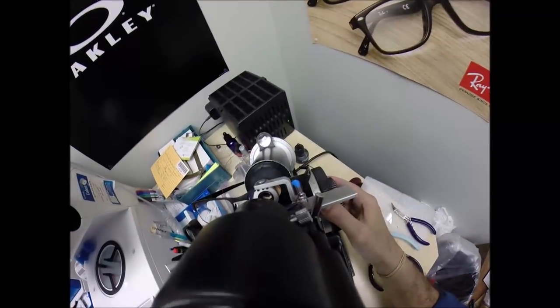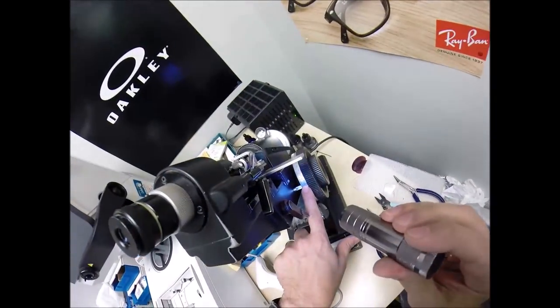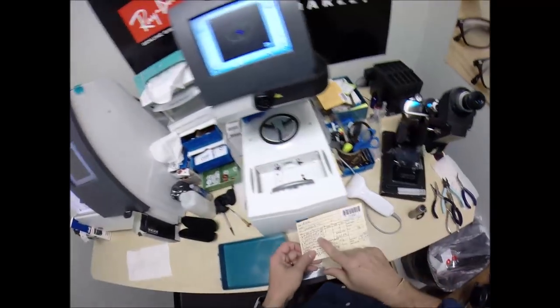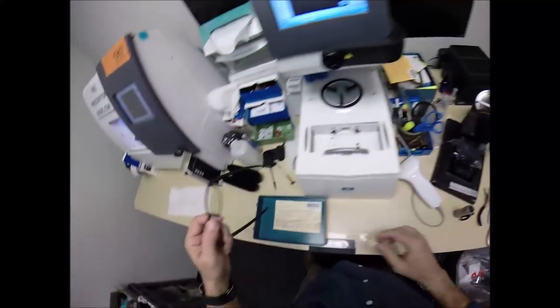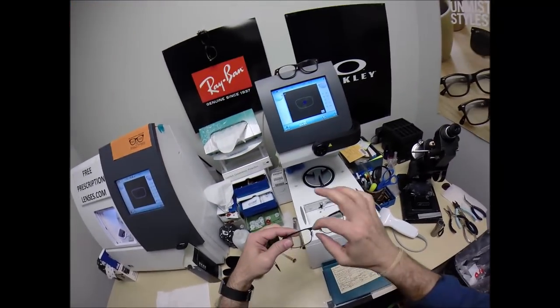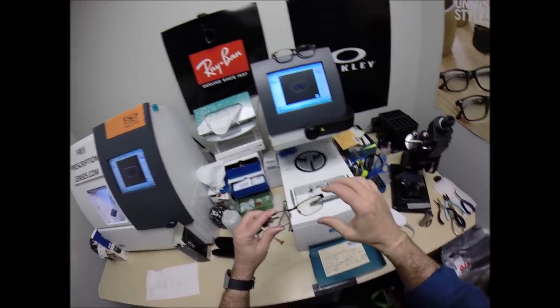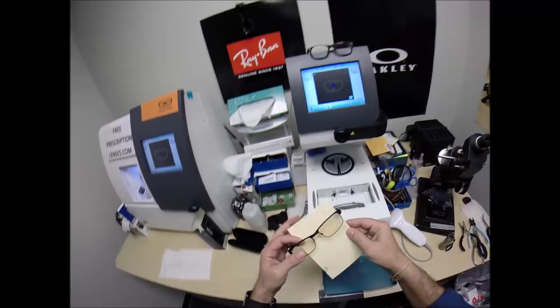Let's see. Let me look in here first. Yeah, we have three thicker lines. We go from three skinny lines in the middle to three thicker lines that are a little bit more separated at minus 50. So that was three steps away. Your pupillary distance in each eye, 29 for each eye from the center of your nose outward. The center of your pupils is 29 millimeters this way and 29 millimeters this way for a total of 58.